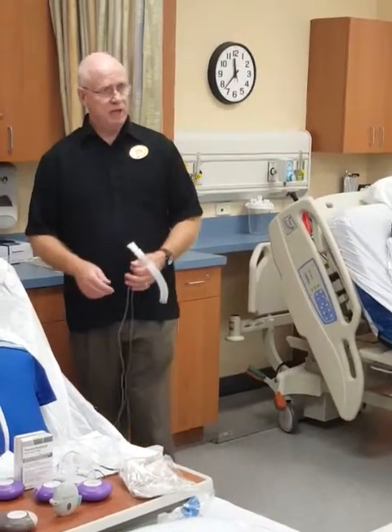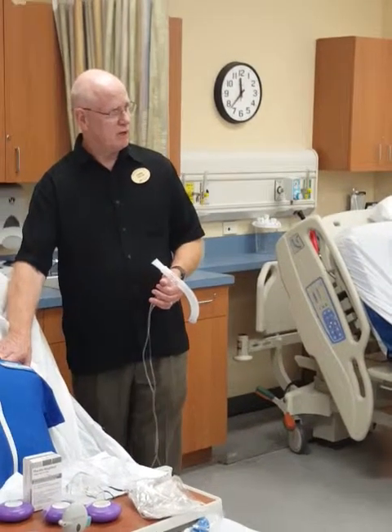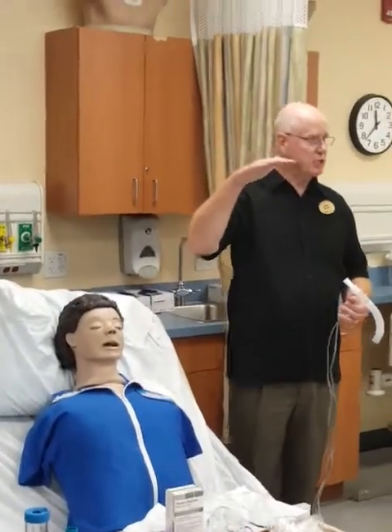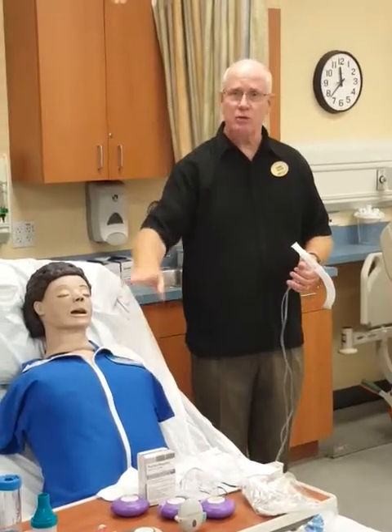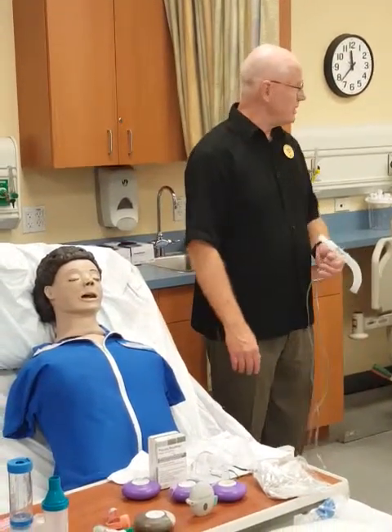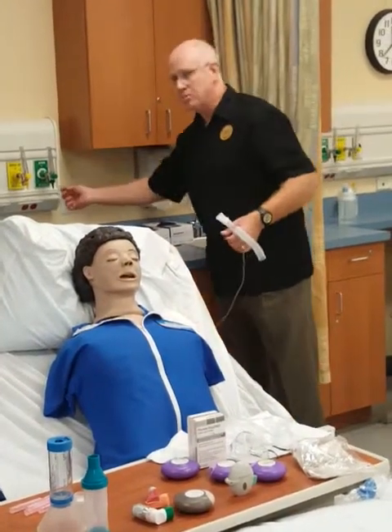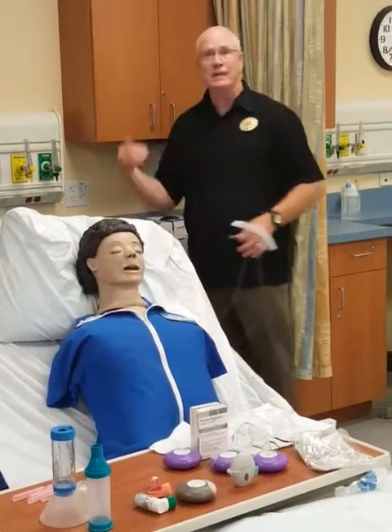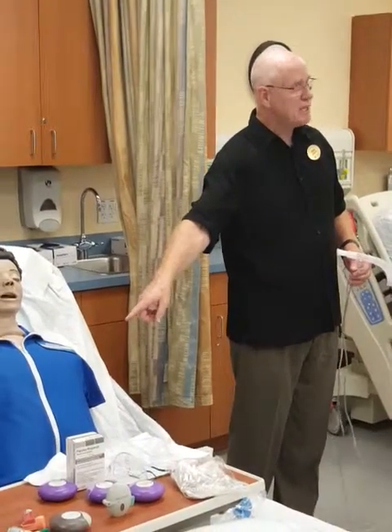If you take this COPD patient — chronic obstructive pulmonary patient — who naturally is high in CO2 all the time and always low on oxygen, and they're on a small amount of oxygen, one or two liters, and you take the cannula off them, hook this up to oxygen, give the treatment, then turn it off and leave — if you forget to put that oxygen back on that patient, it's going to be a real problem.